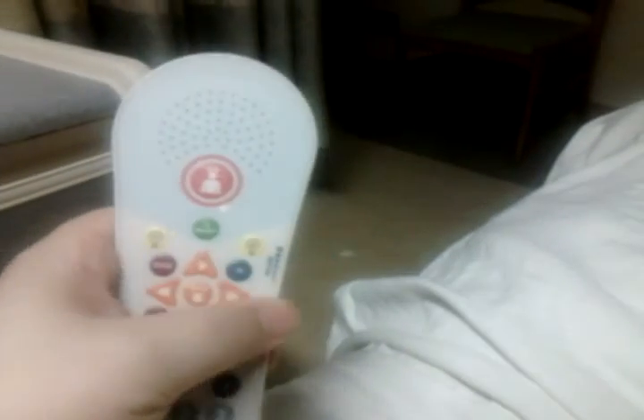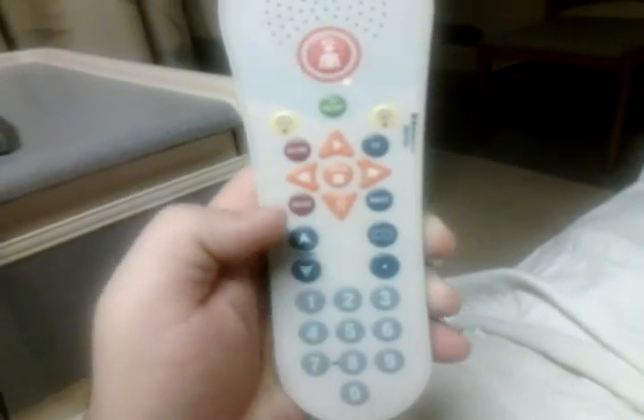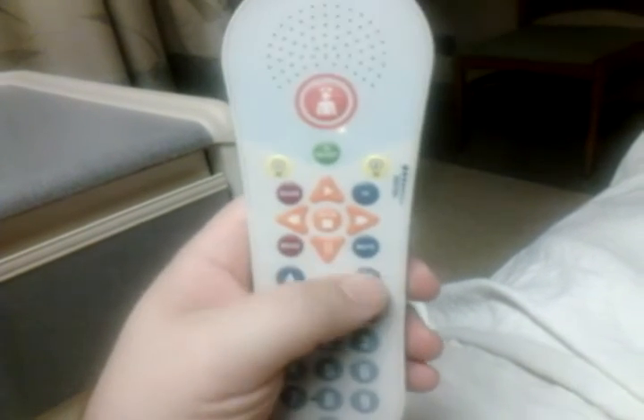So you see how that all works. You can also plug in headphones on it. That really is it as far as the remote goes. I don't know what the period button does — maybe it has to do with typing numbers like 8.1 or something, but you can't really do that. There are only about 60-some-odd channels, and that's really it.